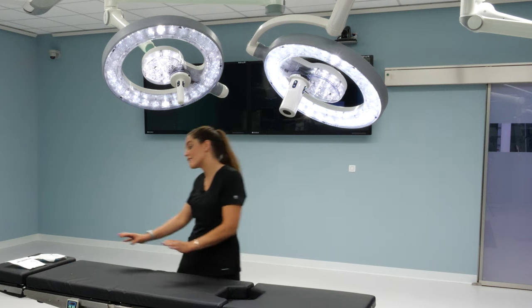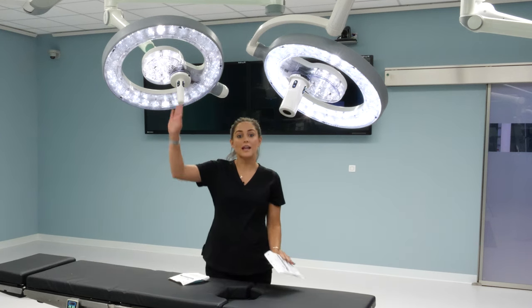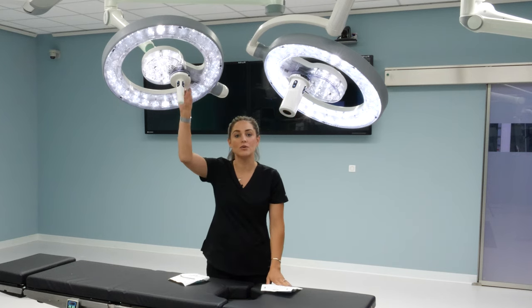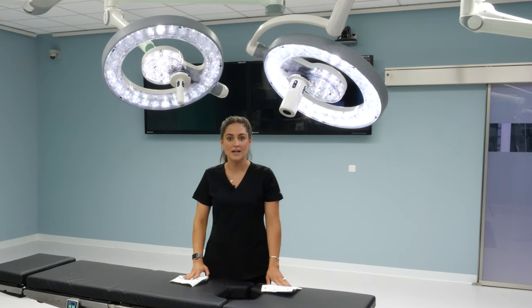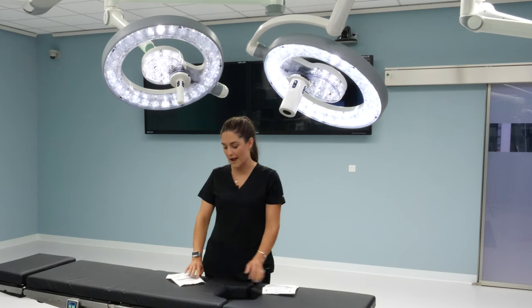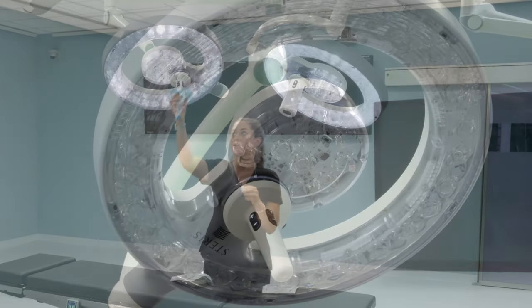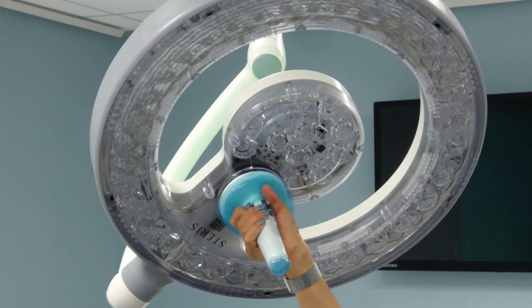Now to review the sterile cover options. You have one for the light as well as the camera — both disposable. There are adapters available if you want to use different covers than the ones provided from Steris. These can come direct from Steris or in your custom case packs. This is your sterile cover that you simply slide onto your light, and you now have sterile control of the buttons.